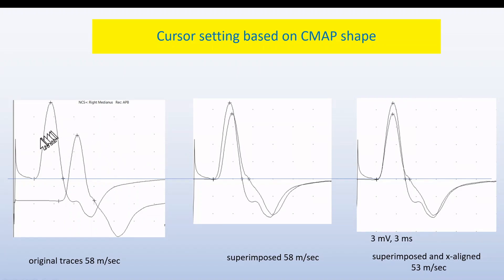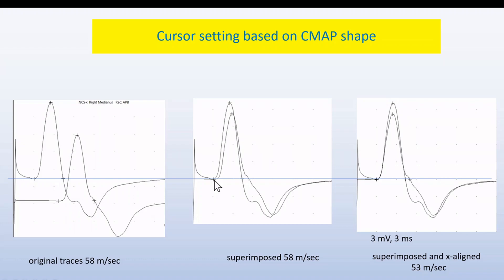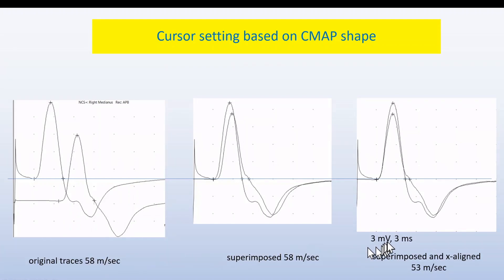Here's the same thing again — a real recording with the distal and proximal responses aligned vertically. You can see they are slightly different; clearly the cursors were not set correctly. These are aligned according to the cursor setting. If we now move the proximal cursor just a little, we can get them superimposed and use this time setting for calculating the conduction velocity. The original result was 58 meters per second and after correction it became 53 meters — so a slight but meaningful difference.